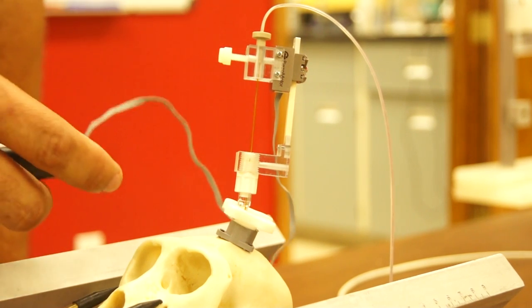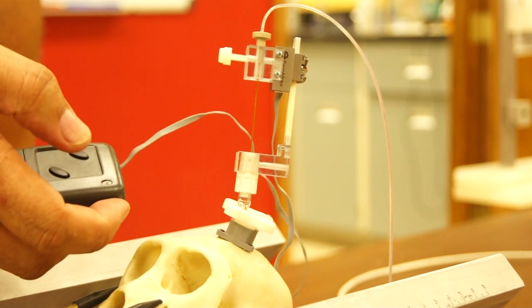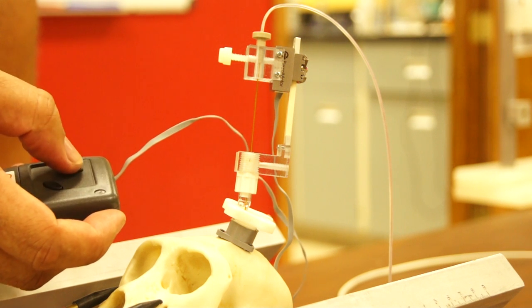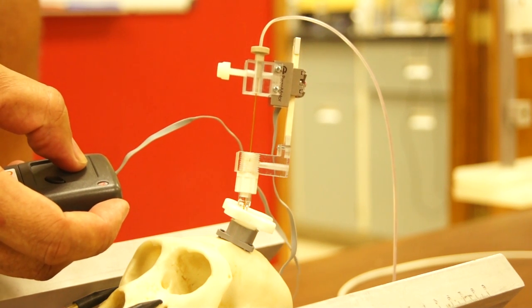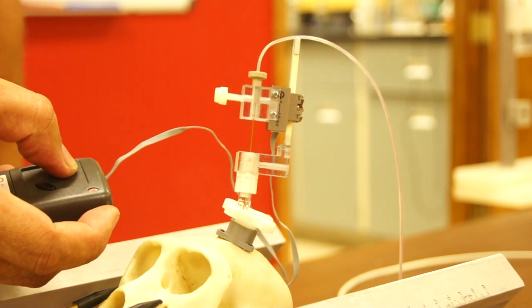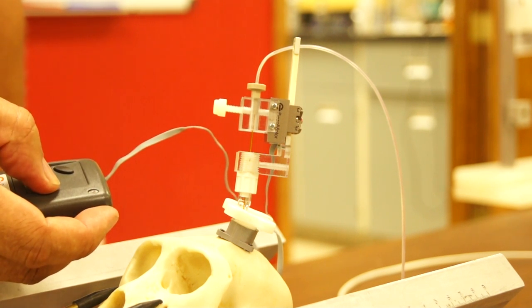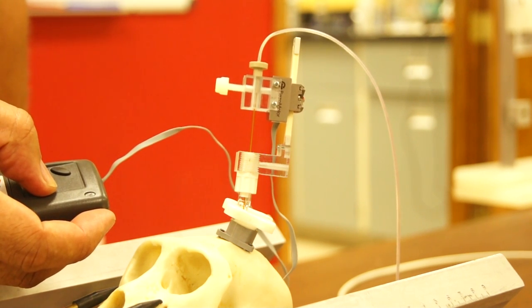This is a demo unit I got from Sweden. It comes with a handheld control. Pre-programmed motion. Down. Advance and retract.